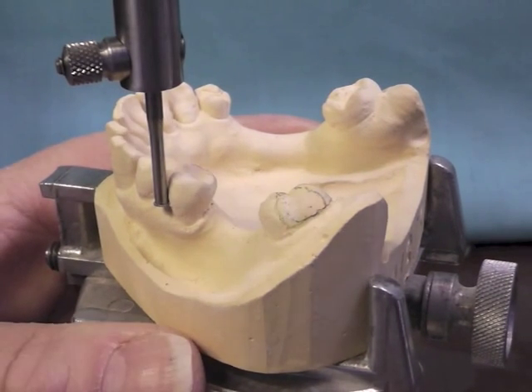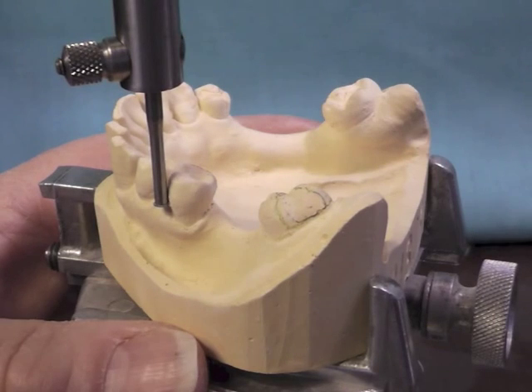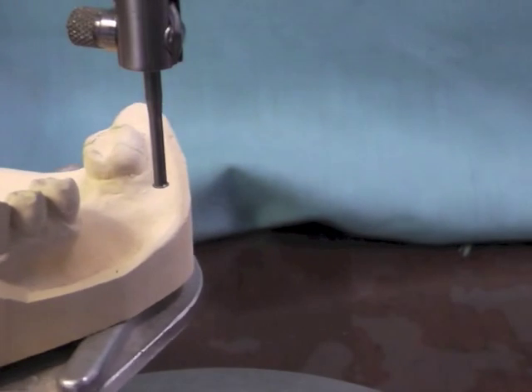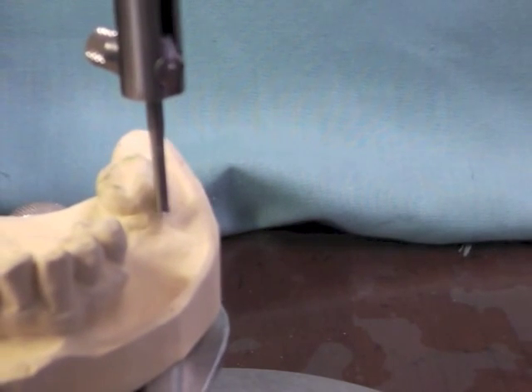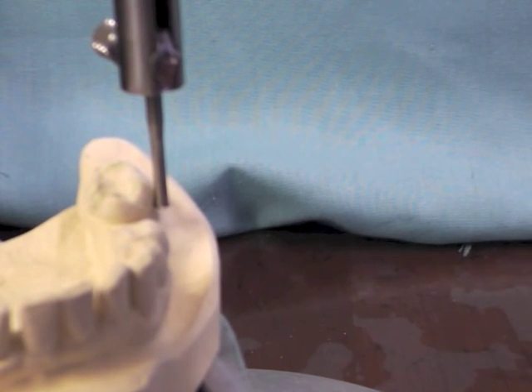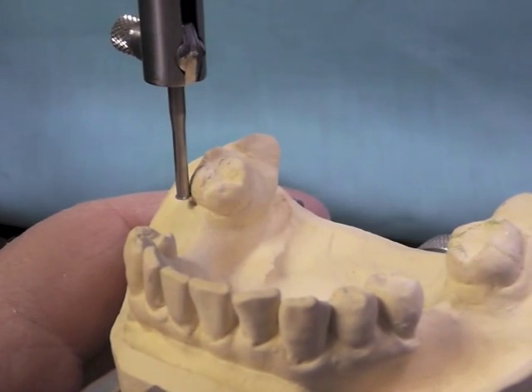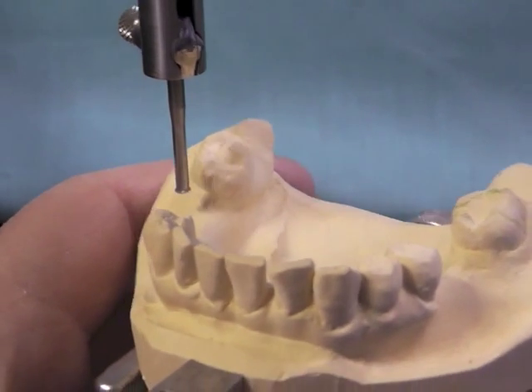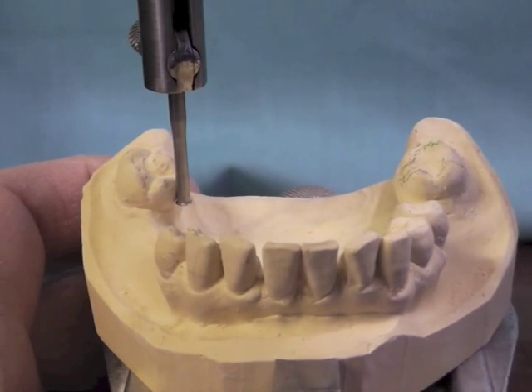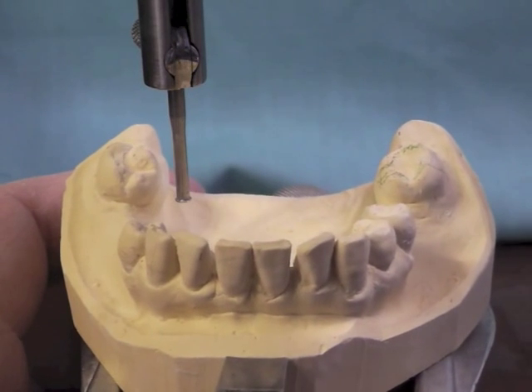One thing you want to think about: you don't want that undercut to be on cementum. It needs to be in the cervical third of the crown, but before you get to the cementum. And then when I look at these teeth back here at this orientation, I have a 0.01 undercut on the buccal, and I have a 0.01 undercut on the mesiofacial of this tooth. Now, that 0.01 undercut is higher up on the lingual surface than on the other side.